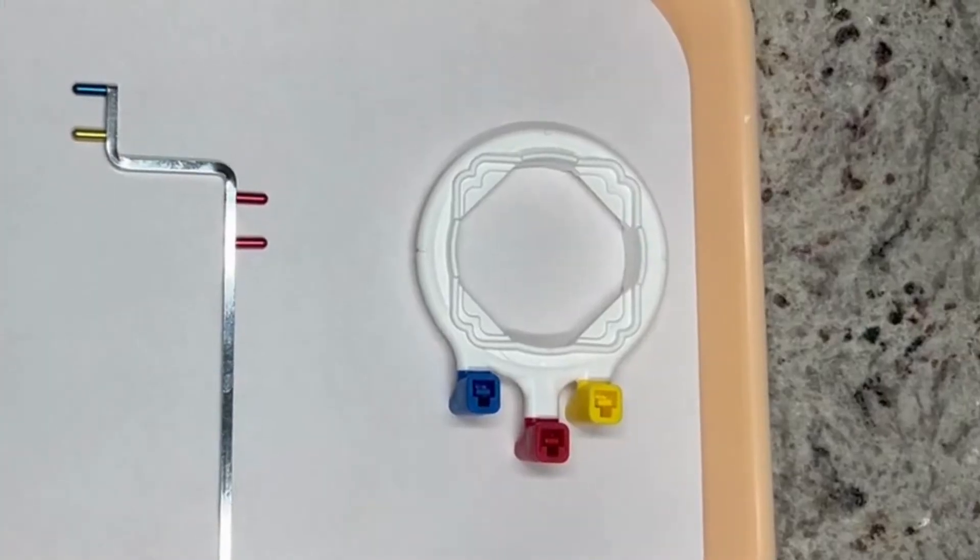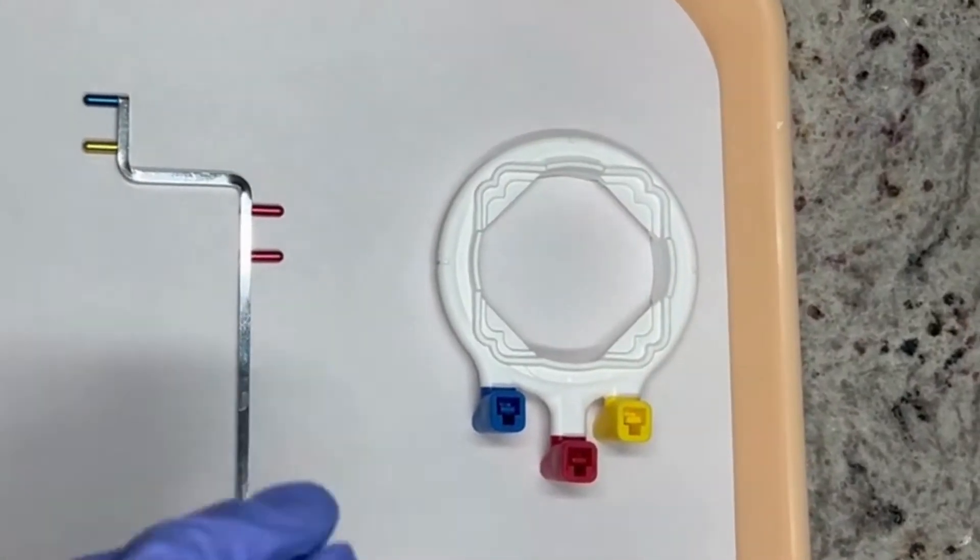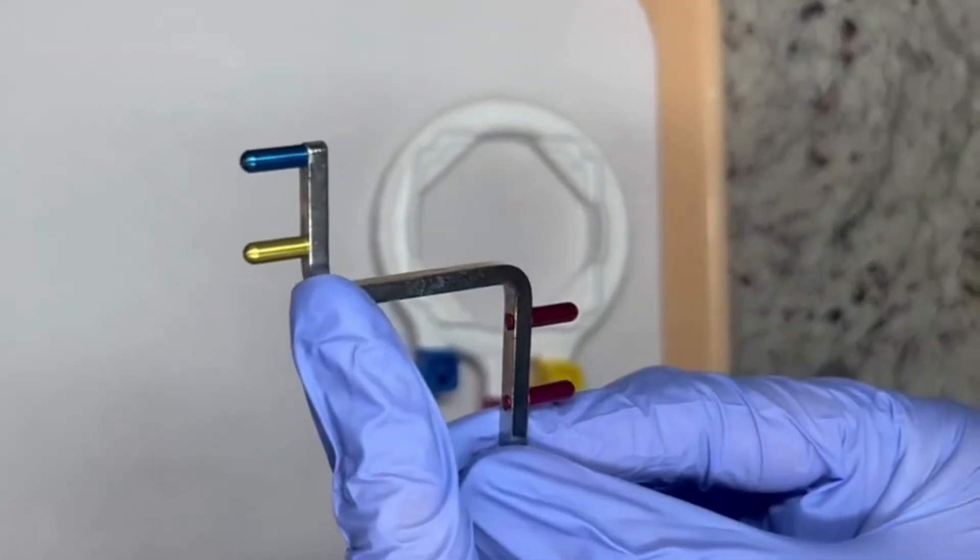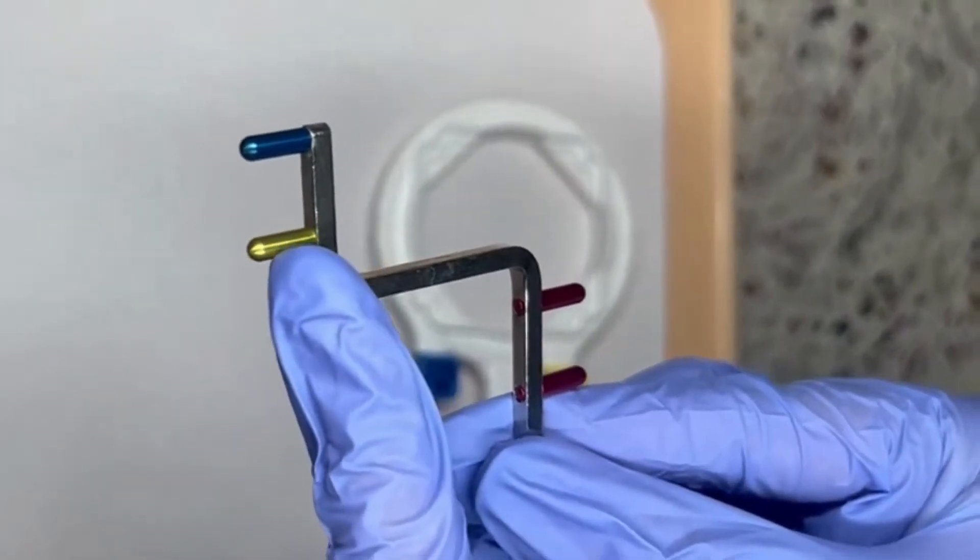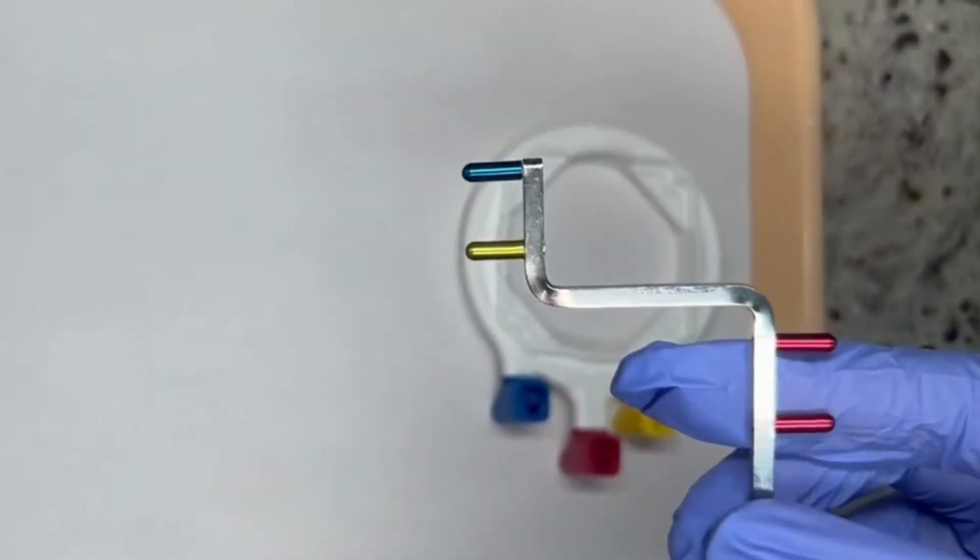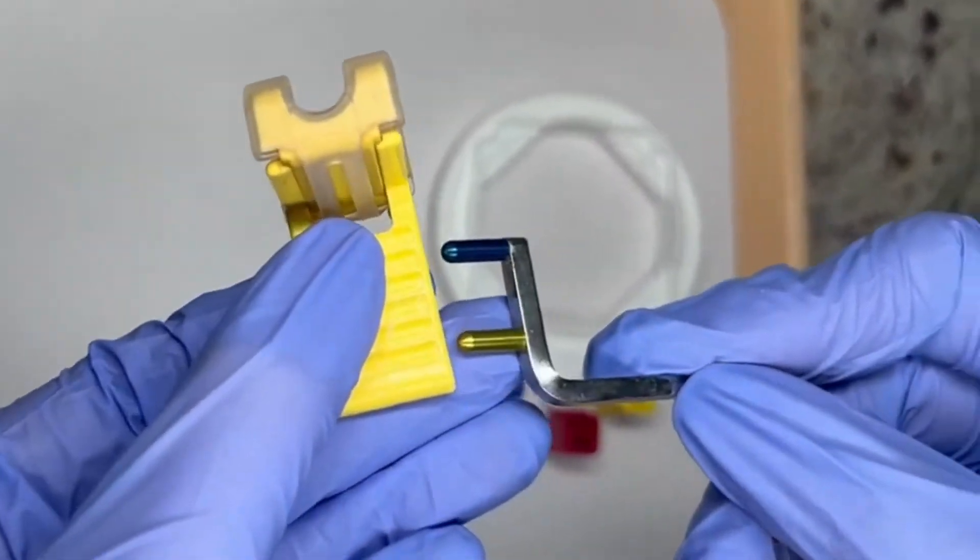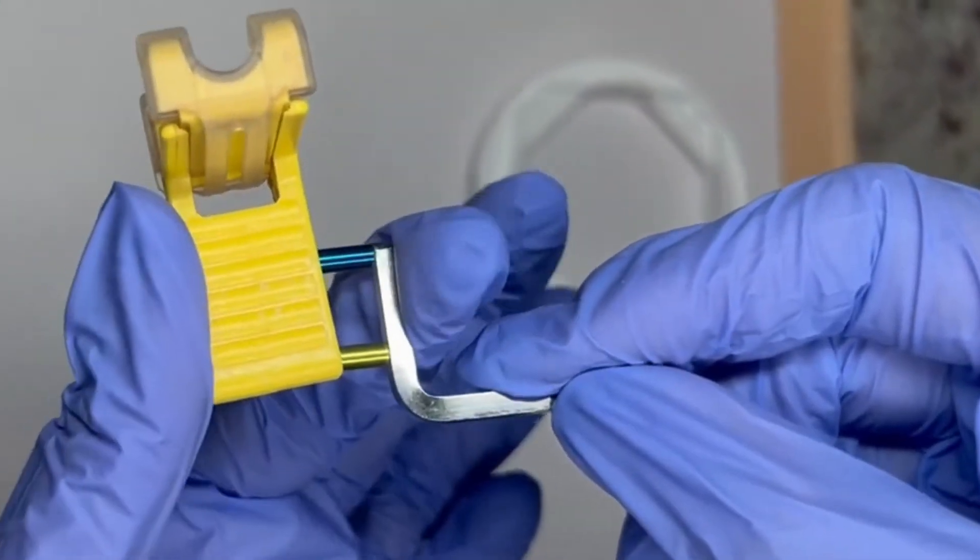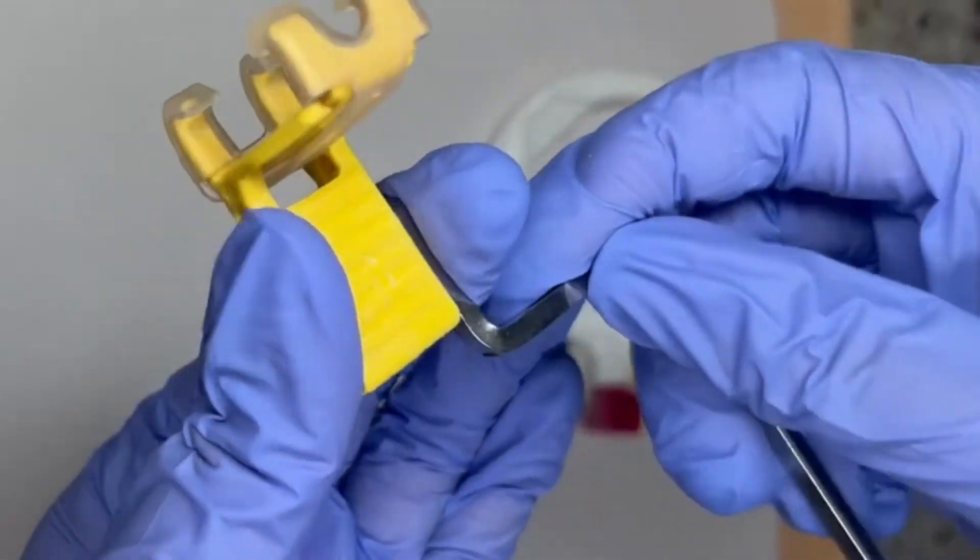First we're going to start with the yellow ones for the posterior. I'm going to grab my arm right here, we're going to use this portion since it has the yellow part. We're going to take our bite tab and just like in the three separate ones, it's going to go on the right side of the bite tab.